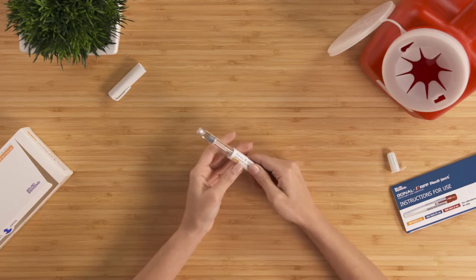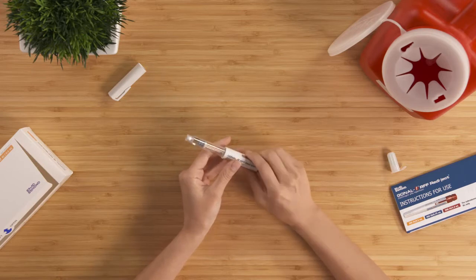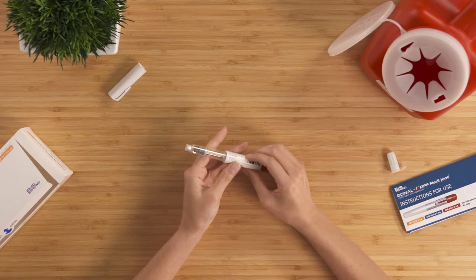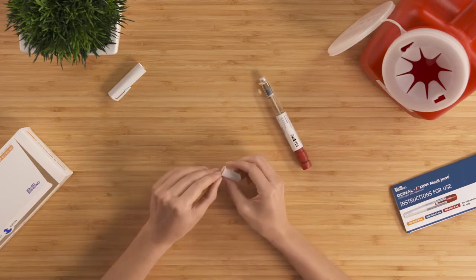Confirm the medicine is clear, colorless, and does not contain particles. If the plastic is cracked or if the liquid is discolored or cloudy, get a new pen from your doctor or pharmacist. Check that the needle's peel-off seal is not broken. If it is, get a new needle.